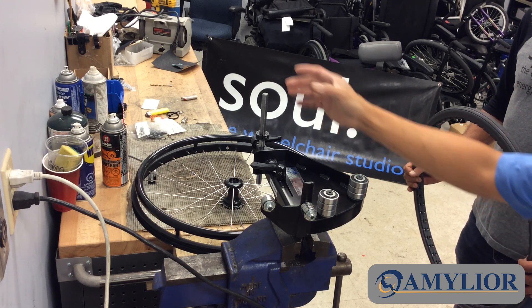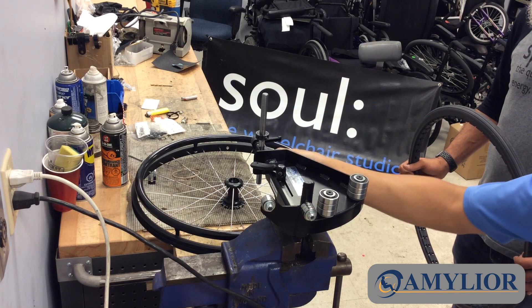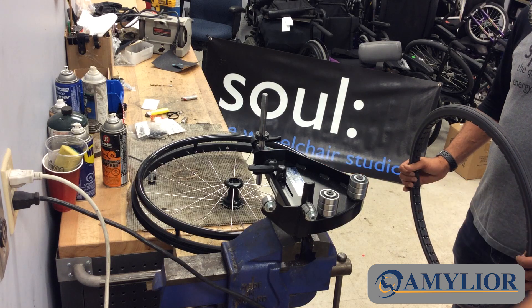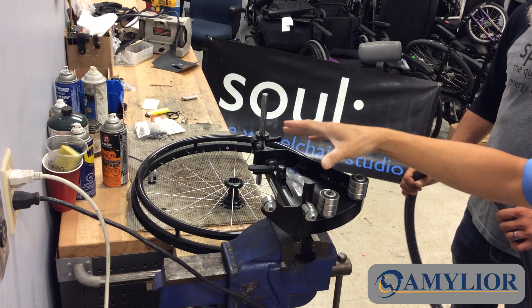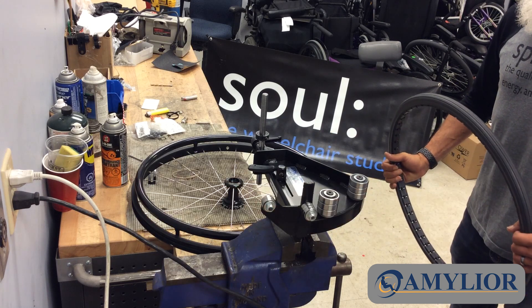Real quick, the hub will drop onto here. This will adapt for 20 inch, 22, 24, 26 inch — as it slides in and out, it'll adjust for that. The rim will sit on top of the frame itself, the tire will slide onto the actual rim, and it should be done pretty quickly.